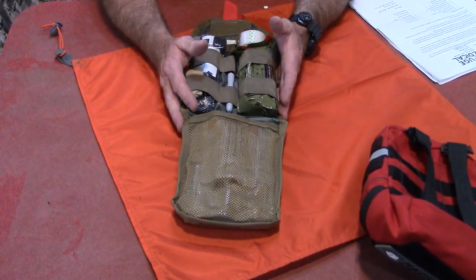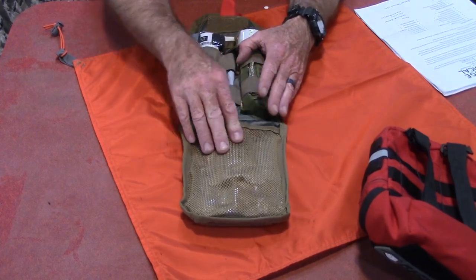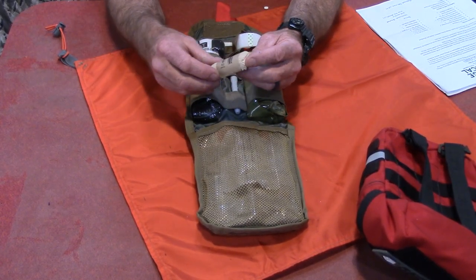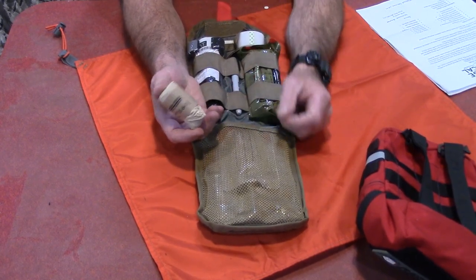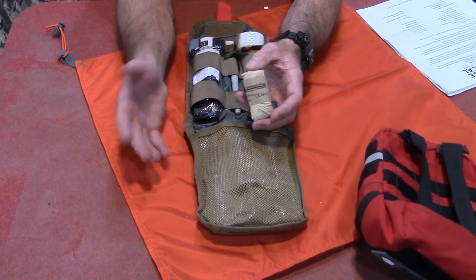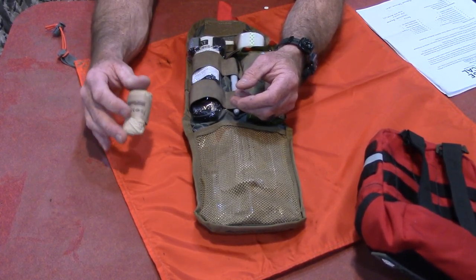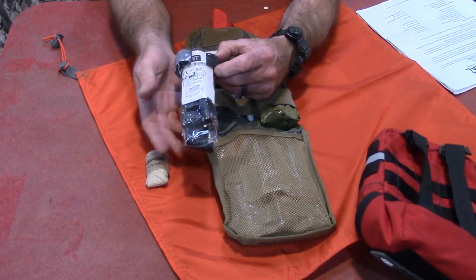In no particular order, first it has a pack of North American Rescue trauma gloves. One thing I really like about them is they're not black. So many people put black gloves in their kits, which I think is a horrible idea because you need to be able to check for blood. Black gloves do not show blood very well. These nitrile gloves are going to show blood — I like that a lot. Also, a true North American Rescue CAT tourniquet. Of all tourniquets, this is my favorite. This tourniquet alone is about 30 bucks, so not cheap at all.